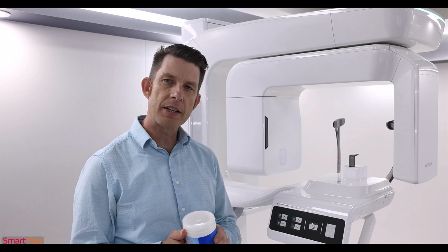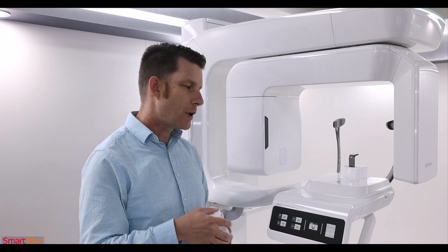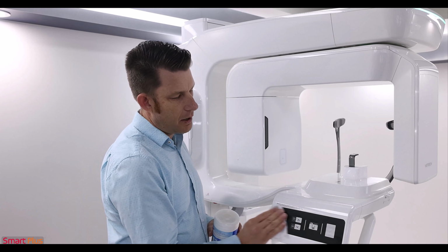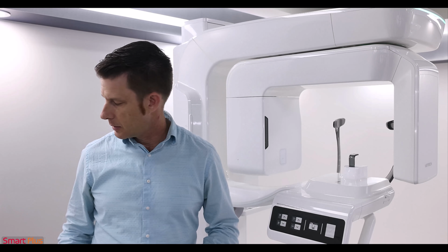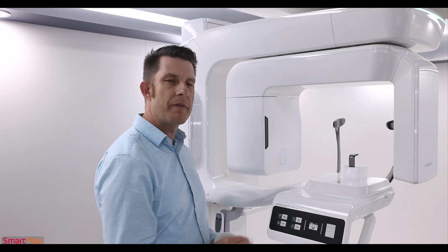Lastly, let's talk cleaning and care. To disinfect the device, you want to use a hydrogen peroxide-based cleaner, and you want to have it on a wipe. You do not want to spray into the device, so have that on a wipe. Wipe down our areas. Let that sit per the manufacturer's recommended time. Let's grab a dry cloth and then wipe off any excess.